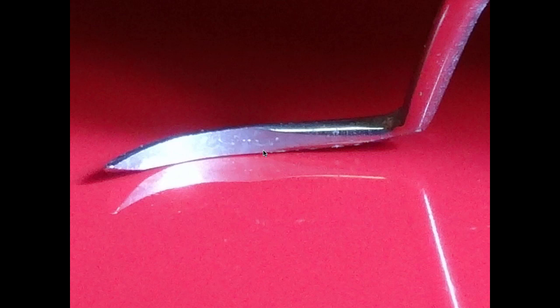You want to work your way all the way to the tip of the instrument, sharpening four or five times as you go. Basically about 15 to 20 passes is plenty to sharpen that instrument.